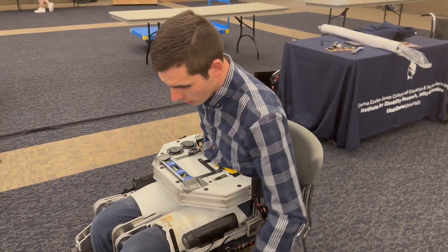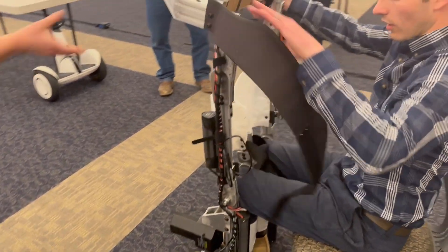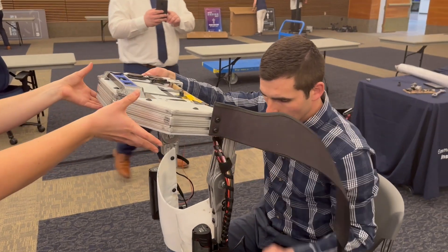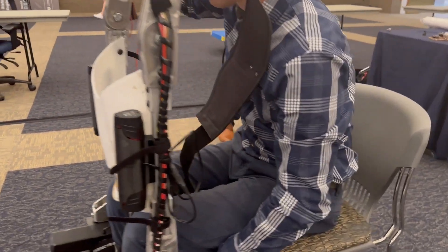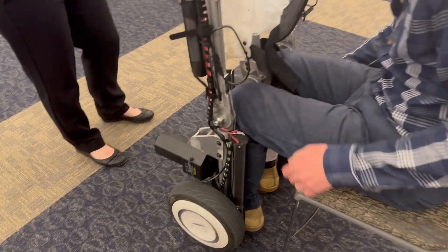So I'm undoing the strap around the back — there are two straps here underneath my legs. And this goes up like that. This is a big key component here: these calf plates slide up and remove, and this one does too.